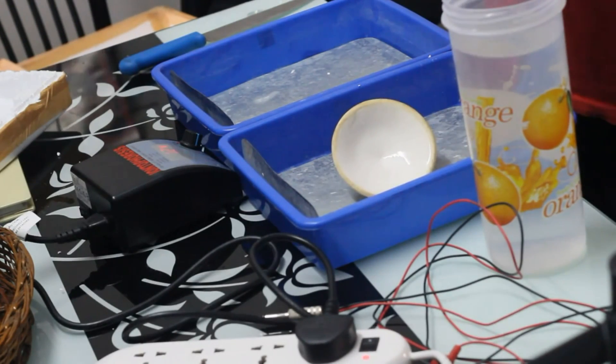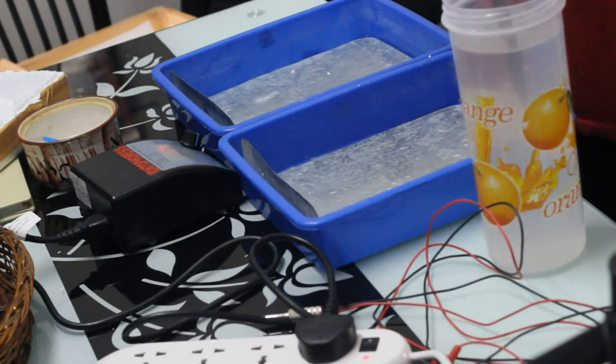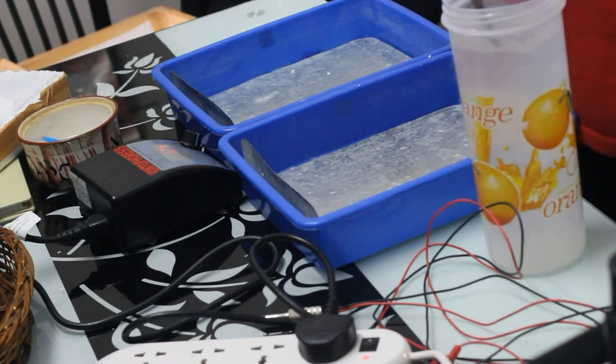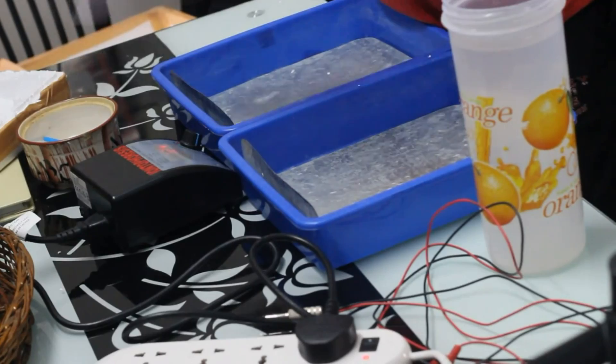Now, I'm going to take the salt and dissolve it into the water. This is a salt solution. I have mixed it in two liters, at least five tablespoons to make it a little salty. For hyperhidrosis treatment, the salt solution is important and which will give you extra boost when you take this procedure for the palms and the feet.